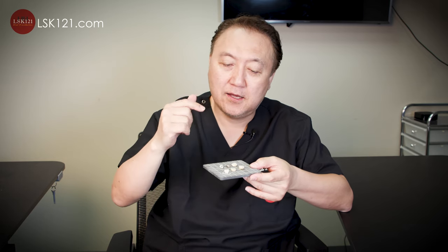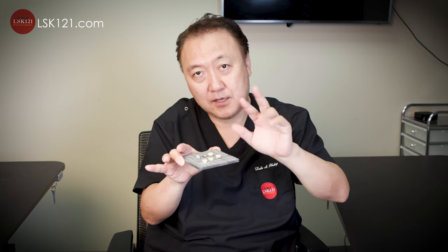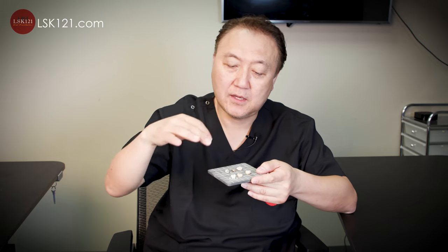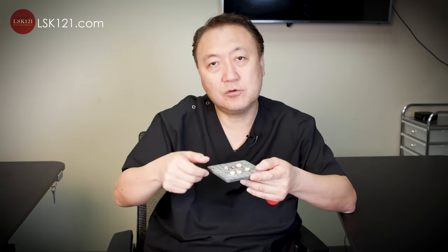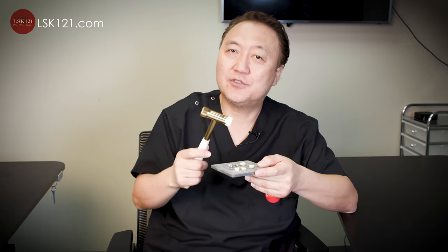If I need a crown, if I need my restorations — for example, I got damage here, you broke the teeth and I need a crown — which one do you like? So today I'm going to talk about metal-free options and metal options, which is the porcelain-fused metal, and then gold crown or metal occlusion. And I can test with a hammer to see which is more strong.